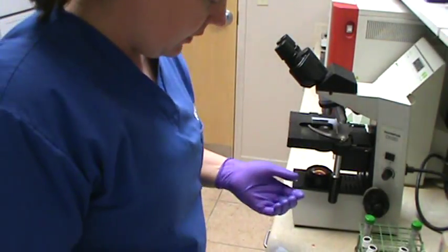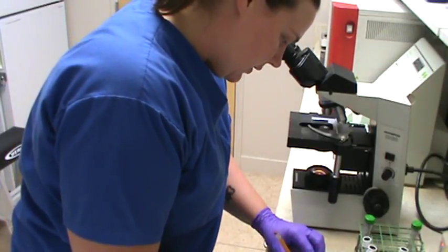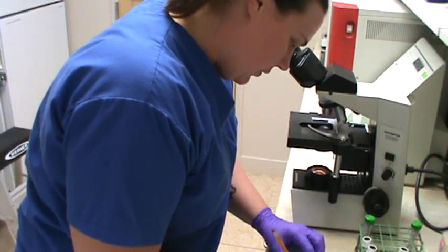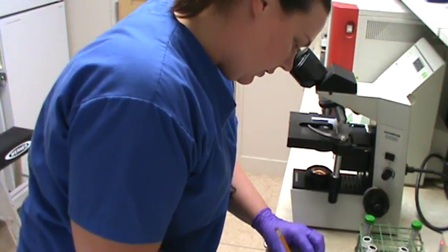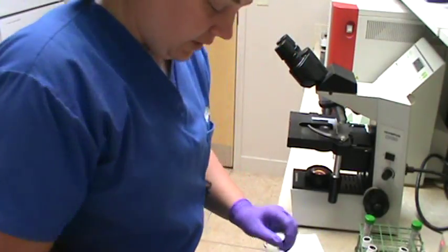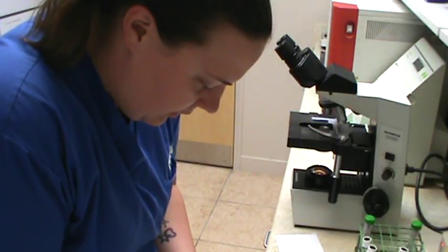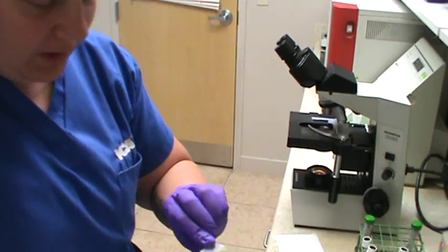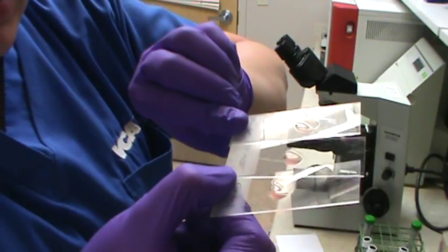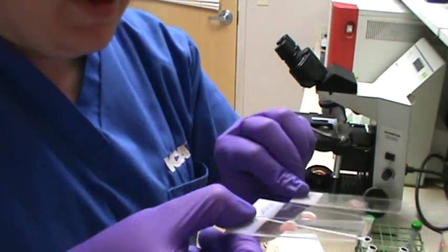I'm going to also write down that just for our control, macroscopically and microscopically, no agglutination, which is awesome, which means that we have a potential blood donor, so that's pretty awesome. Just trying to do a close-up of the slide, because if you'll see, no agglutination is noted on any of my samples. I mean, you can't really see it that great on the camera, but there's no agglutination.